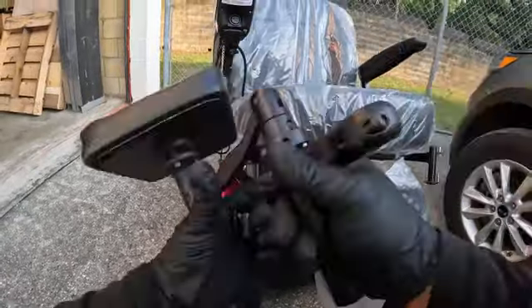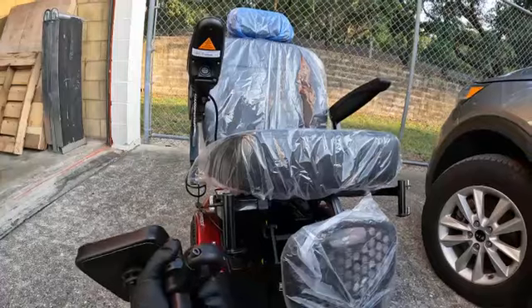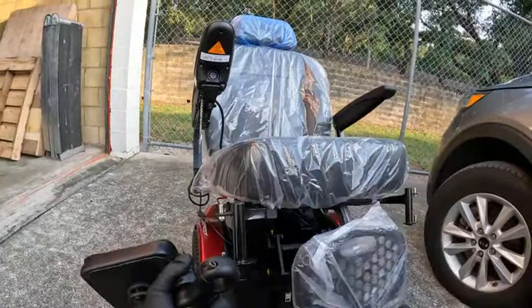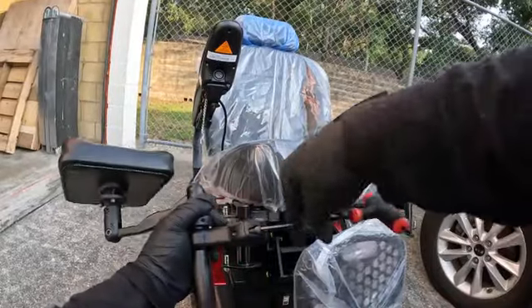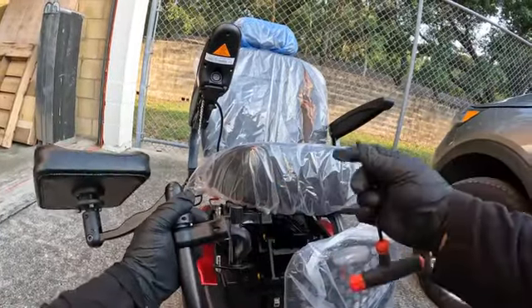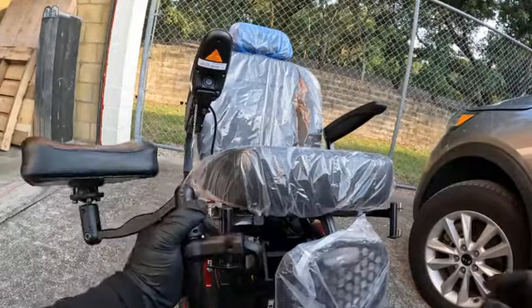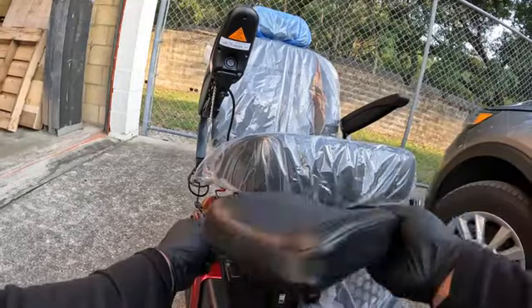The way you hook this up, you're going to need an Allen key for this flange bolt, and I believe it's going to be a number three. Let's try that. We're going to take this one off completely — there we go, perfect. Once you have that off, you're going to mount this on the mounting bracket.